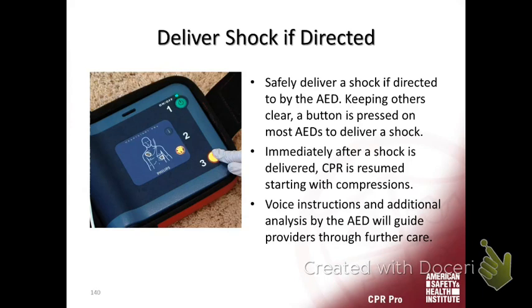If it shocks, it will prompt you to immediately begin two minutes of CPR. The only time you would not do that is if, after the shock, the patient came back — moaning or showing signs of life — you check a pulse and there's a pulse. Any other time, immediately start CPR because of coronary perfusion pressure. You shock them, no change, start CPR. The machine will time you for two minutes.